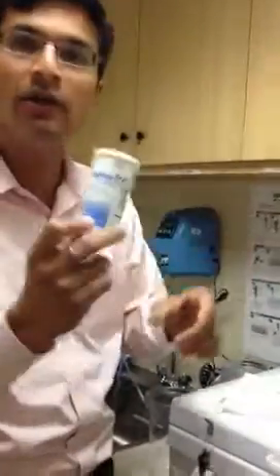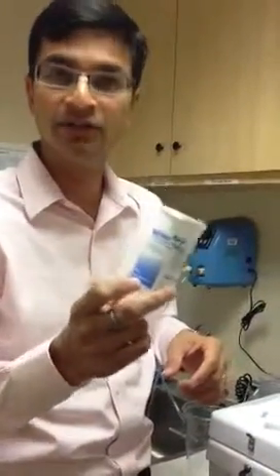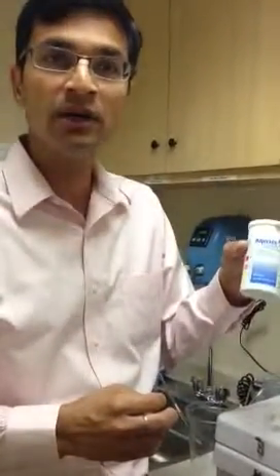You've got to keep me in the picture. This is how you will test the rapicide strips. Everybody needs to know how the rapicide test strips are used. I'm going to show you how the test strips are tested.